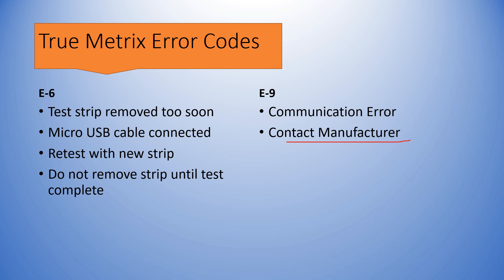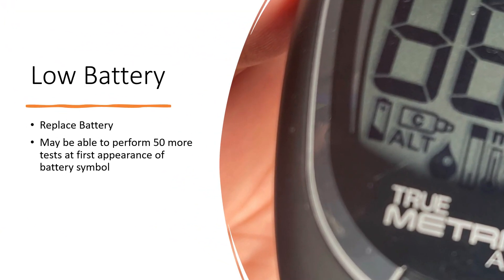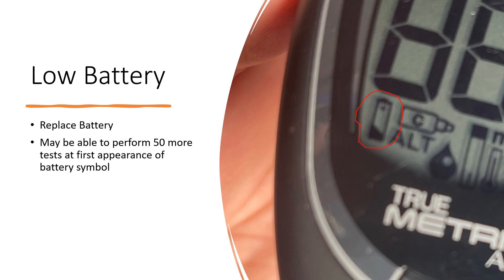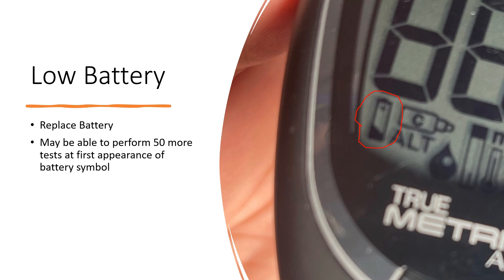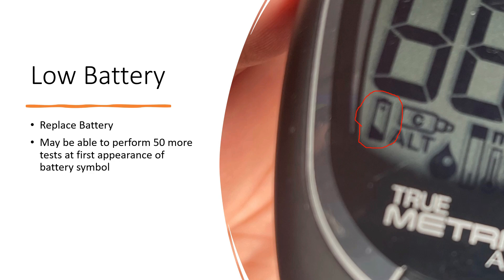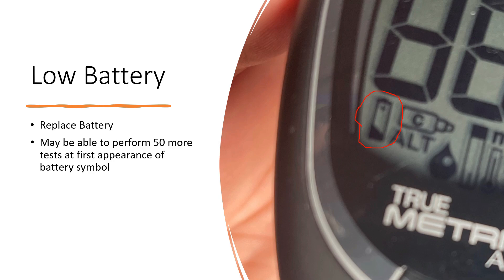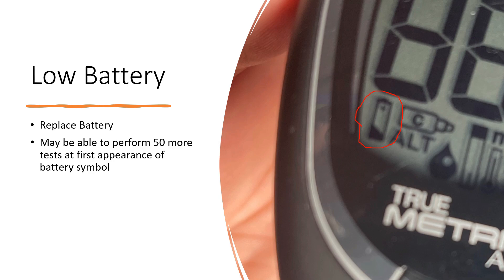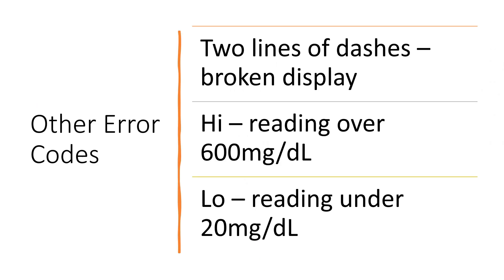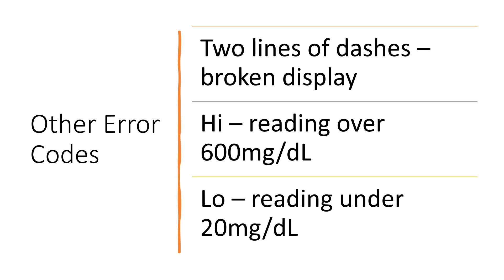E9 could mean a communication error — in that case contact the manufacturer with the number on the back of the meter. For the low battery error, you may see the battery symbol flashing when you turn on the meter, which means it's time to replace the battery. At the first sign of the battery warning, you may be able to perform up to 50 more tests, so you do have some time to get a new battery.